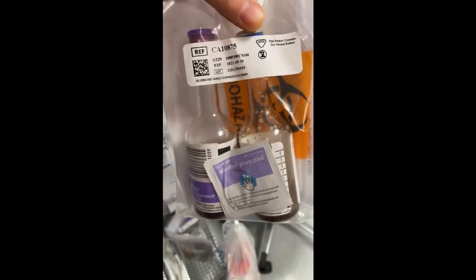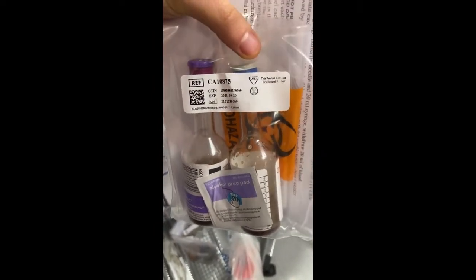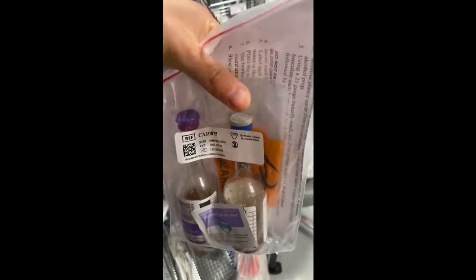Here are your blood cultures. So with the blood cultures, you always want to use an alcohol swab first. See, here's a set of blood cultures, so you need two. You need one set and you need another one in two different places. They can't be from the same place. So you're going to have to stick the person twice.